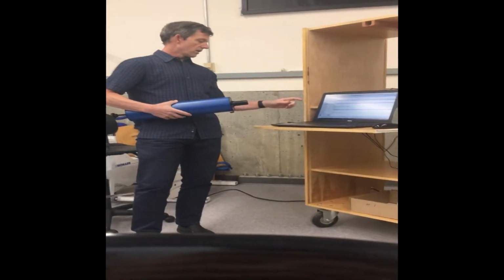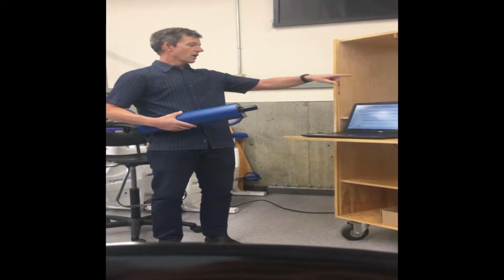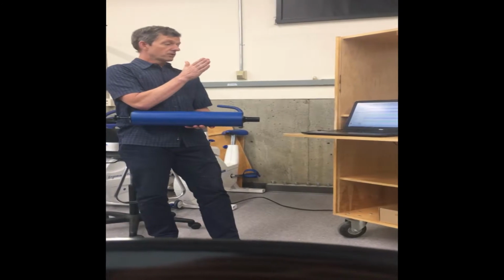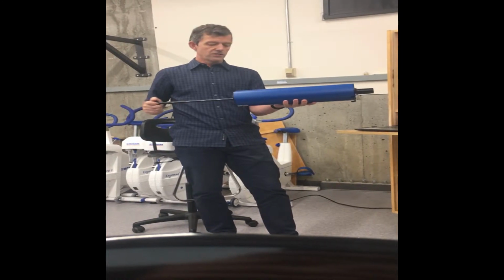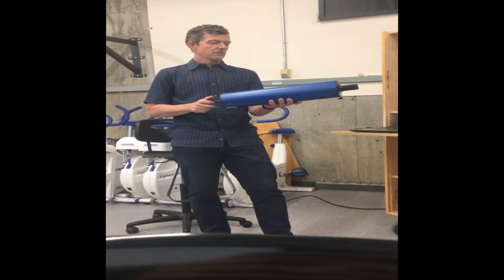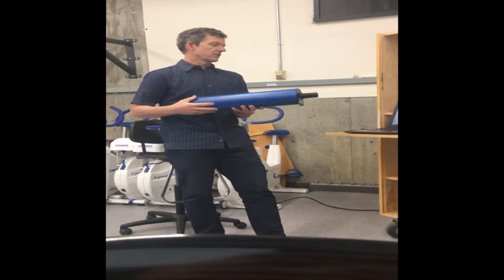So when I click on quick flow calibration, I hook this up to the other end of the tube, which is going into the mixing box, and then it'll say, don't run any air for 10 seconds. And then what I do is I start with this extended, and then I do 10 slow controlled pushes of the syringe, and so we know it's exactly 3 liters that is going in.